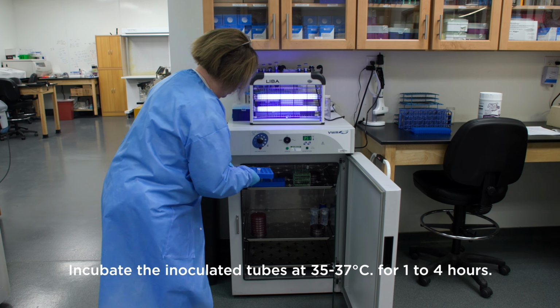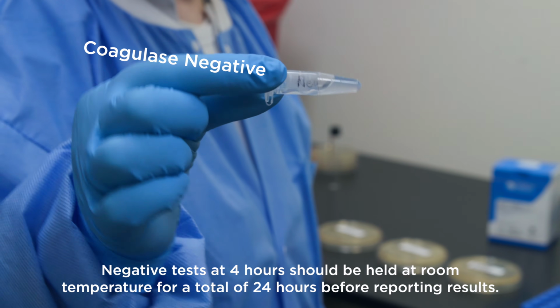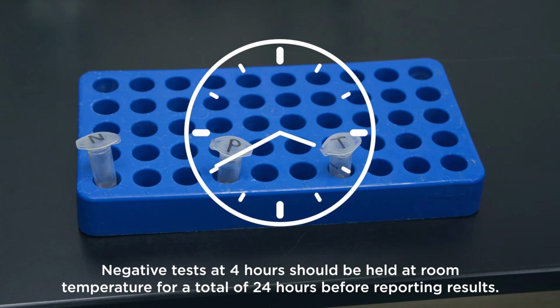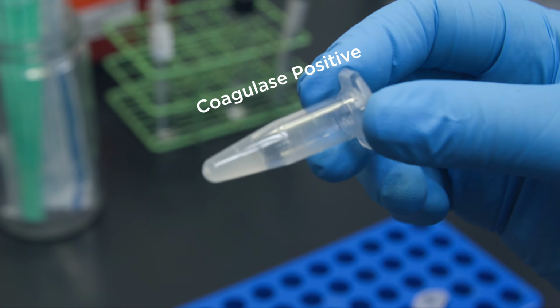Incubate the inoculated tubes at 35 to 37 degrees Celsius for 1 to 4 hours. Negative tests at 4 hours should be held at room temperature for a total of 24 hours before reporting results. Read by gently tilting the tube while observing the clotting of plasma. Results should be read at 4 hours.